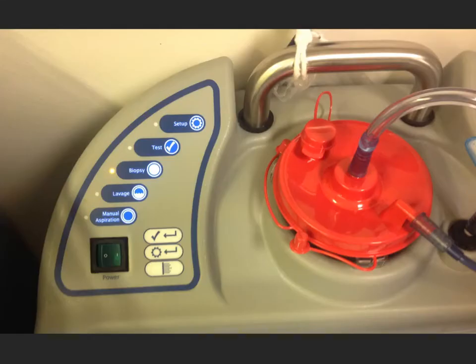Here are the controls on the vacuum unit attached to the biopsy needle. When you are performing biopsies, this is going to be deployed. You then use the lavage button to be able to flush irrigation solution through the vacuum needle and the biopsies back into the pot. And then you'll need to go back into biopsy mode if you need to do more biopsies.